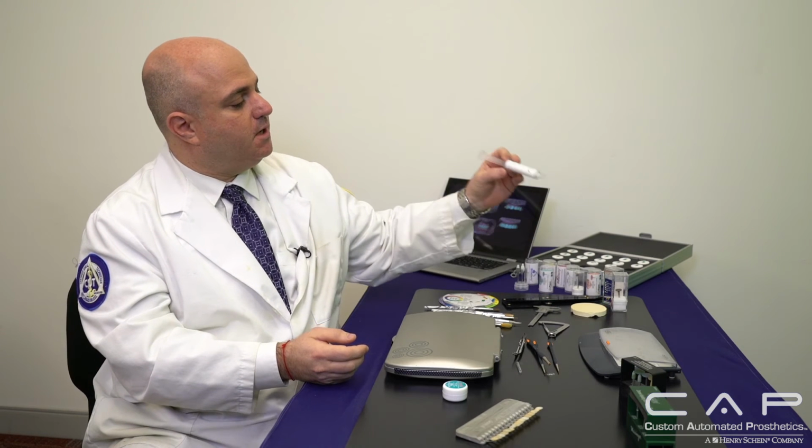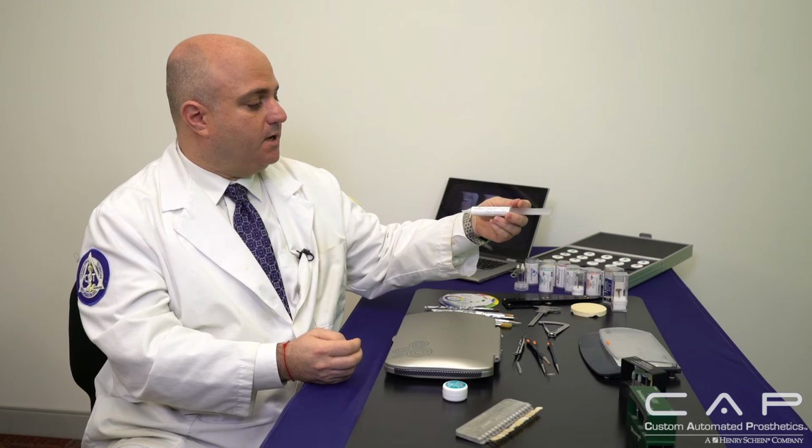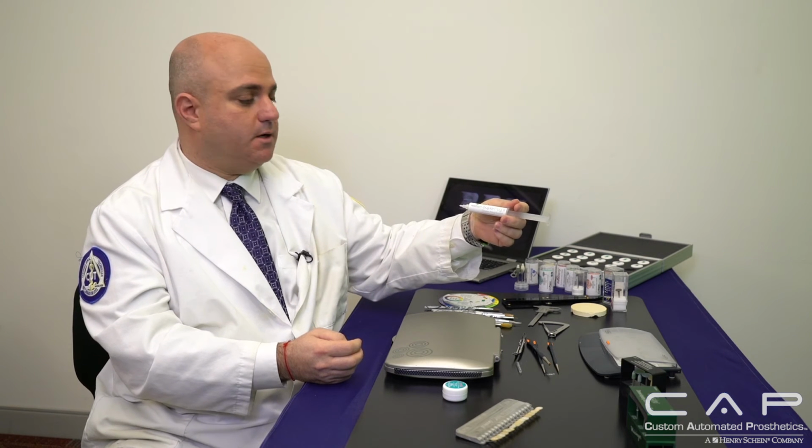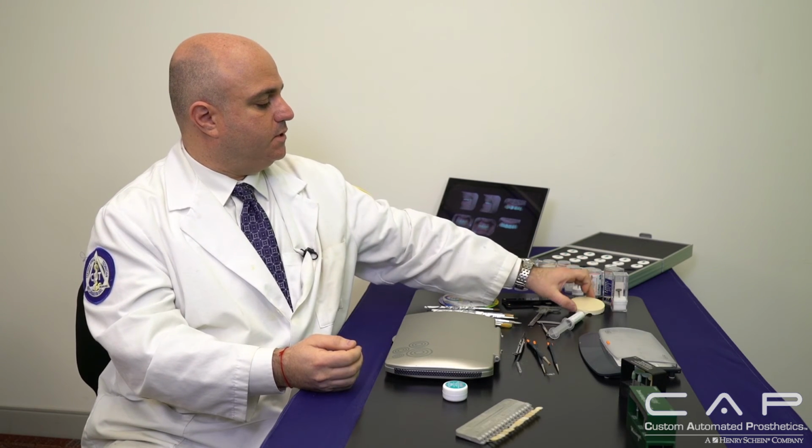So with that said, as I spoke about so many of my tools that are on my bench, and you see them all laid out here. Oh, and one thing I forgot to mention, whether it's stain and glaze or bake, I like to use the Super Peg 2 by Harvest. It's easy to syringe. I put it on a peg and then I place it on, and it really holds through the bake and comes right back. And it's easy to remove, which is key because you want to be able to extract that out and use it at a different level, as well as a honeycomb to bake. So these are the tools.